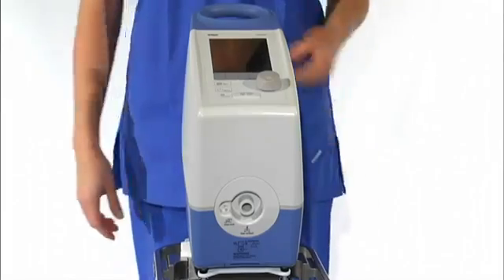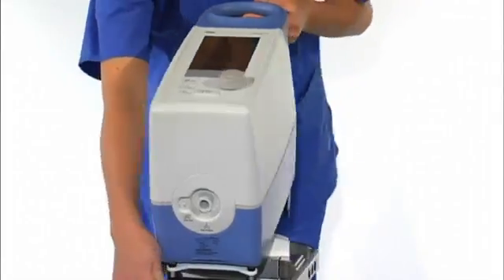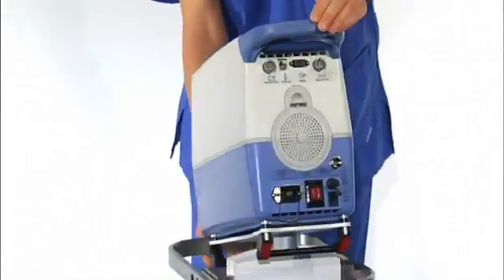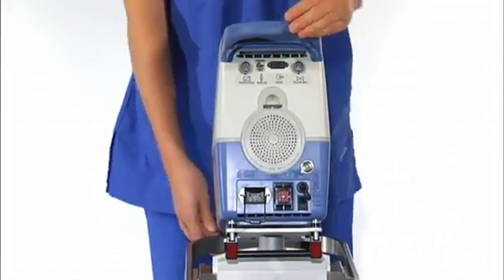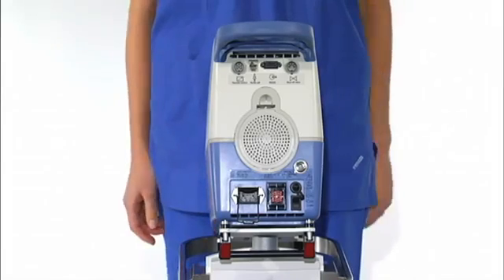Make sure to check that the device is fully functional. This is very important. Any parts showing signs of wear such as cracks, deformation, discoloration, or peeling should be replaced.